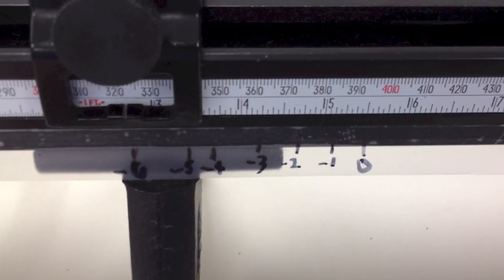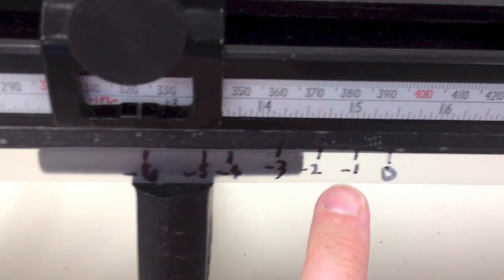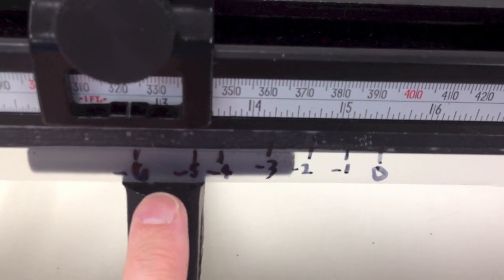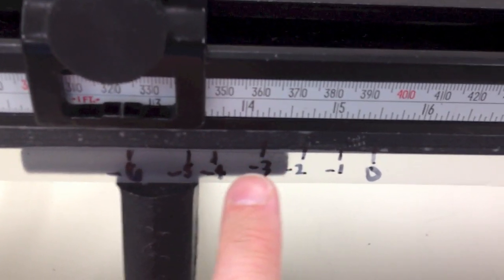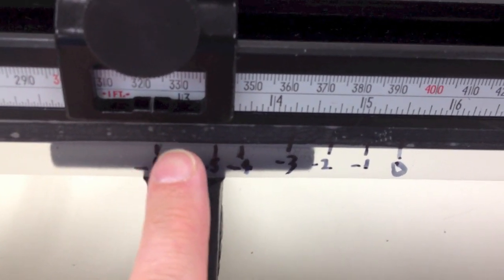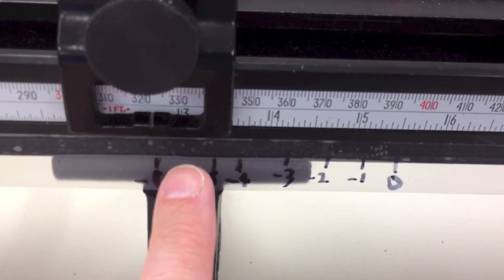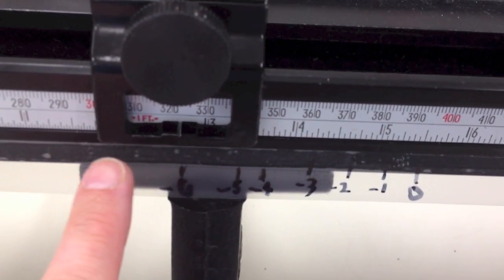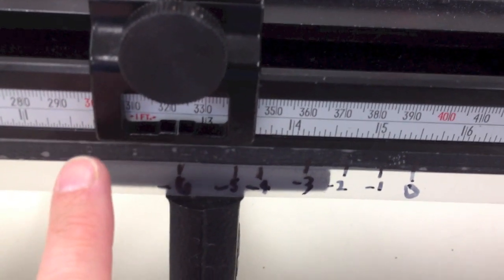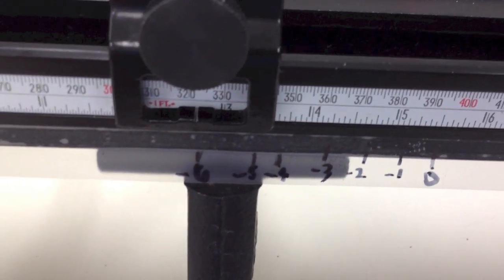Okay, so here I've gone through with powers minus one, two, three, four, five, and six, and I figured out my target positions for each one of those powers that I was measuring. One thing you want to be careful of is to, again, always move into the minus and kind of come back until the target is nice and clear. If you go any farther past that point, you can start accommodating when you look through the tube, and therefore you will get a bad reading. So go past it and come kind of back towards it when you're looking through the telescope until it is very first nice and sharp and clear. If you feel like you've gone too far, start all over again and keep coming back until it's nice and clear.